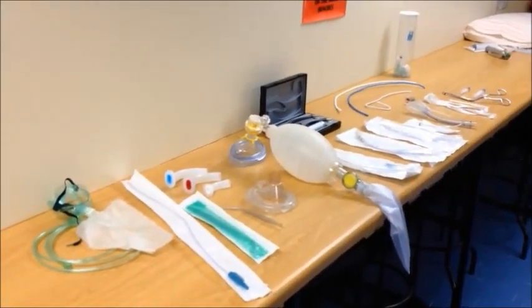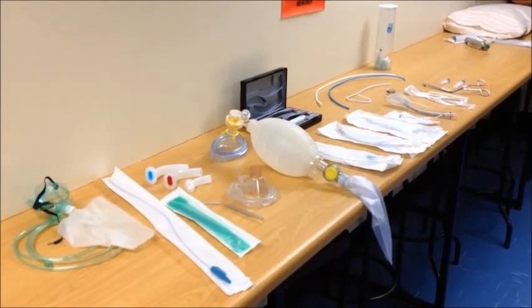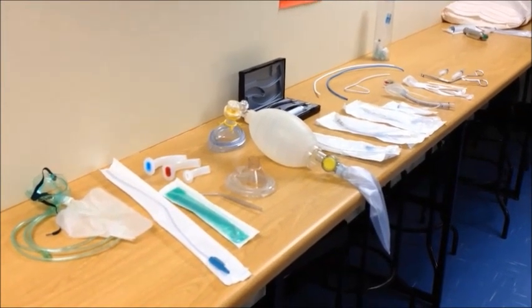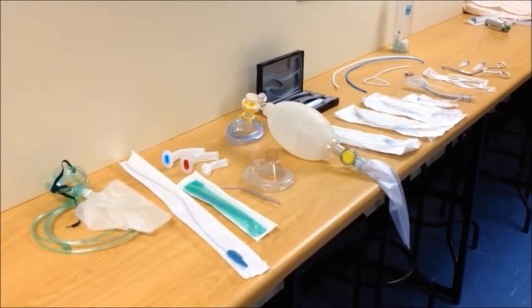There are many excellent mnemonics and memory aids available to assist you in remembering what equipment to gather. The minimum equipment required in preparation for and during the performance of rapid sequence intubation are the following.